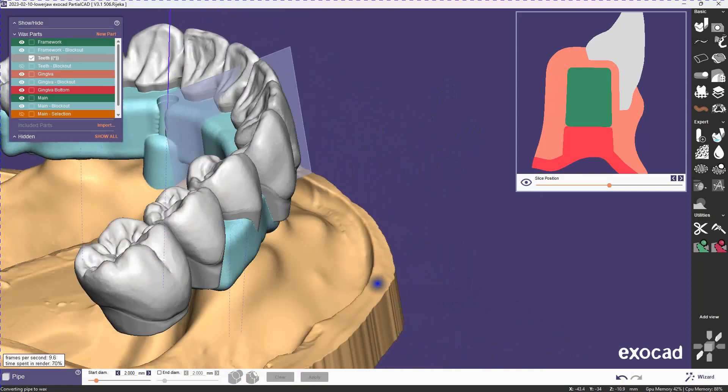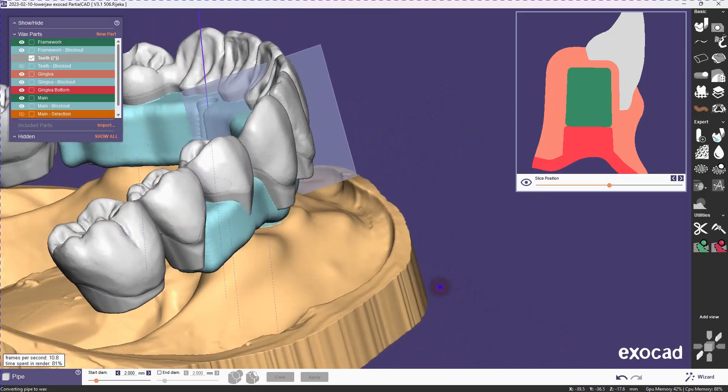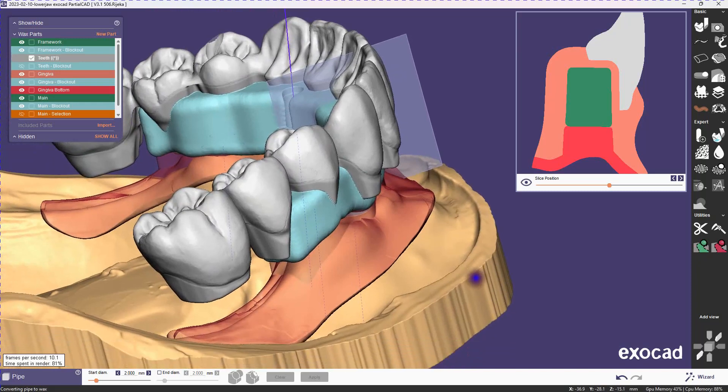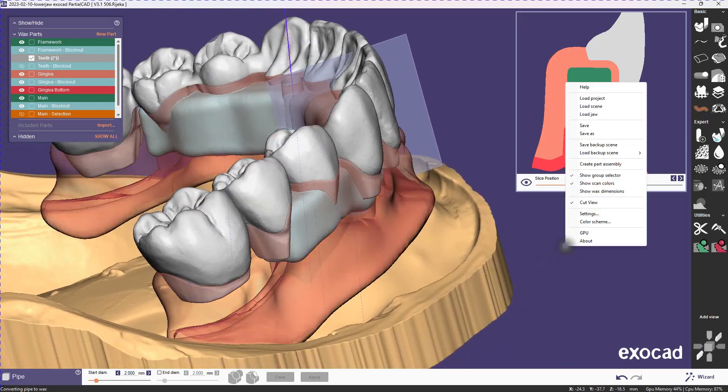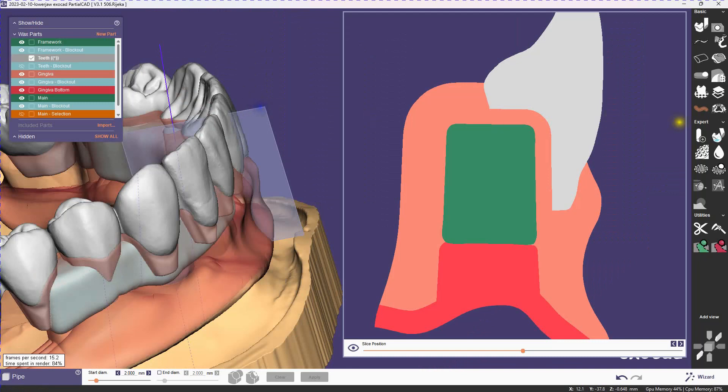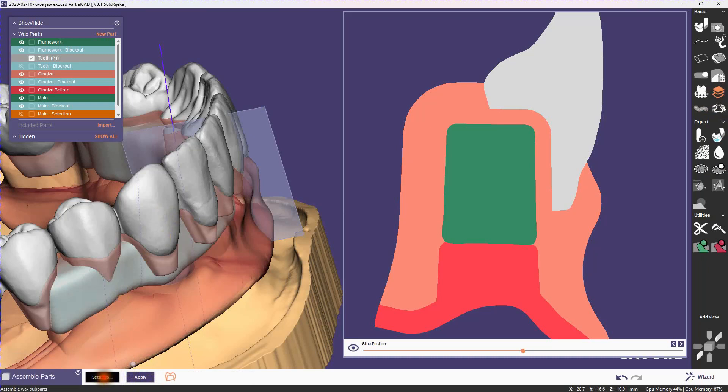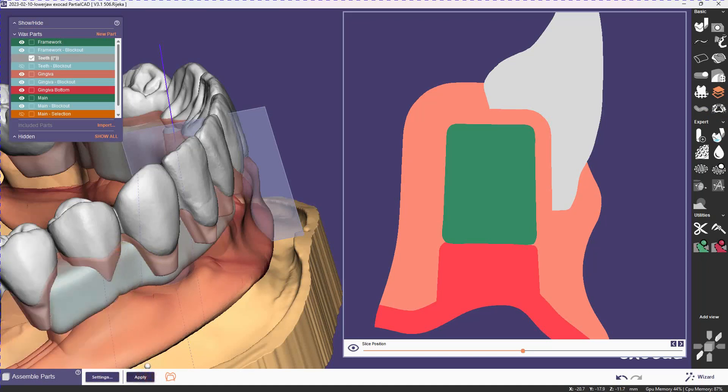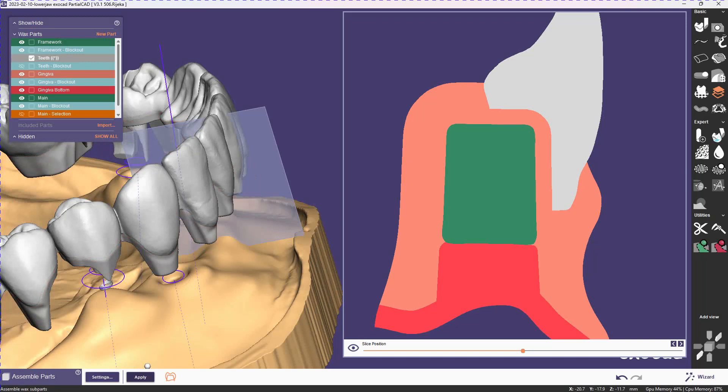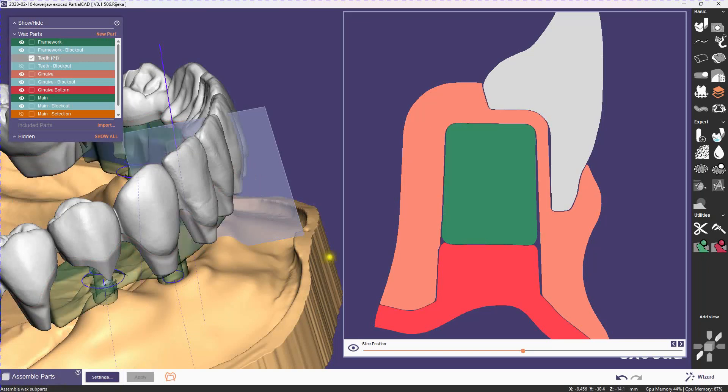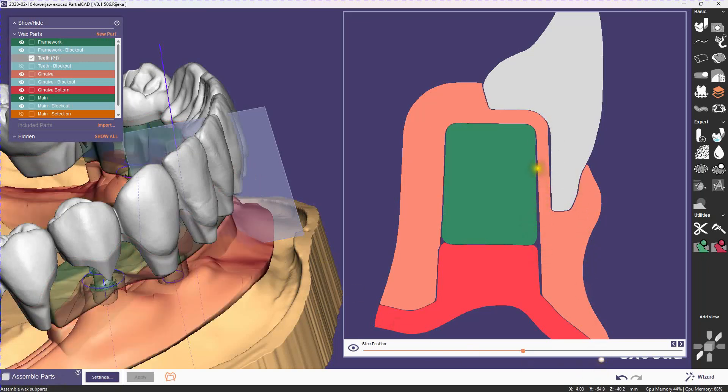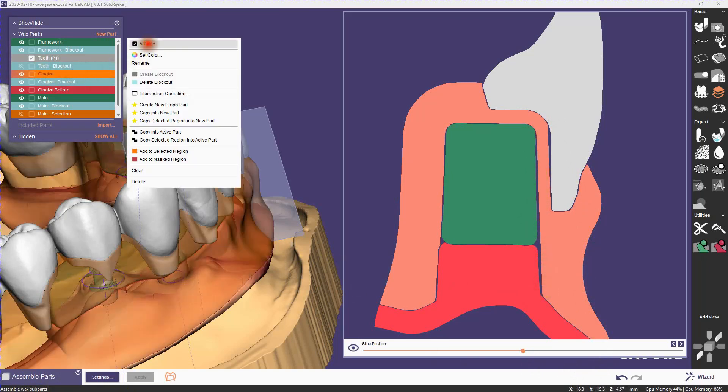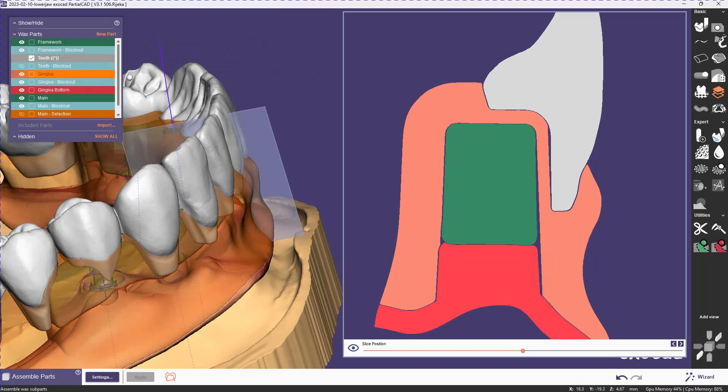So the only thing remaining now is to assemble and to do save for build. So here are your settings for the offsets. These are probably pretty tight. If you're printing your bar in titanium, you might want to have a bigger offset here. So now you see all the offsets. The intersections are drafted. That's why we're getting a slightly bigger gap over there. It should fill up with resin nicely, and it's just in some localized areas, so that's probably all fine.